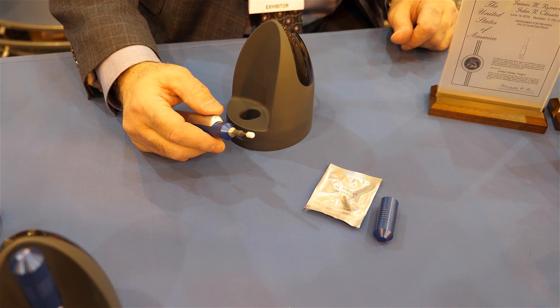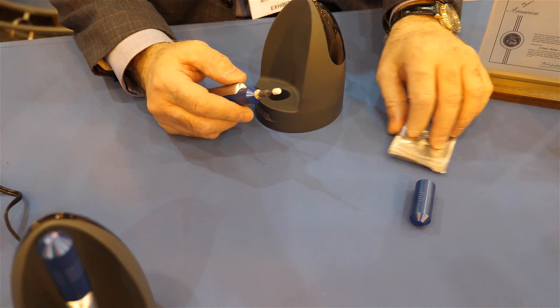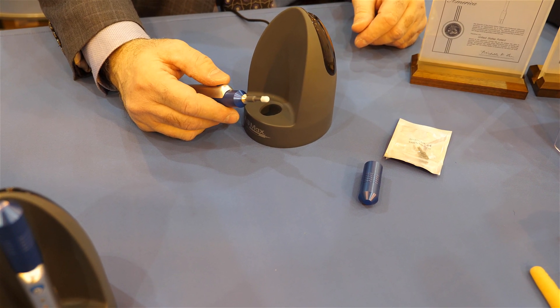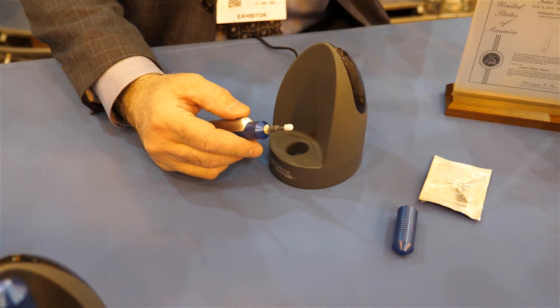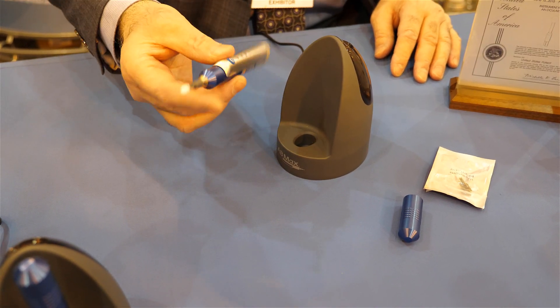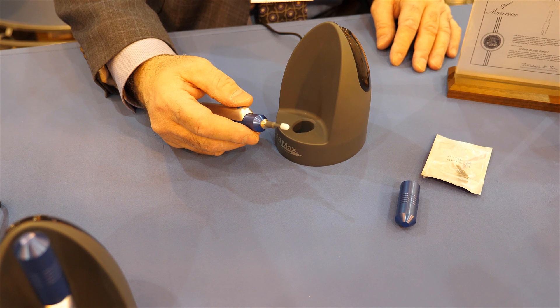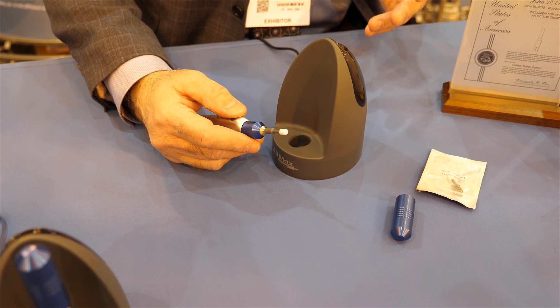Right now, on the intro special, the tips are at $14.95 per procedure. We wanted to make sure this procedure and the device were much more cost-effective, which is part of the reason it's named AB Max — Affordable Blepharoexfoliation. The device will be less than a third of our competitors' cost, and the tips less than half, making it much more affordable for doctors worldwide without a huge capital investment.